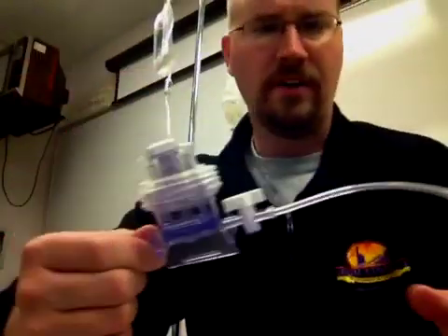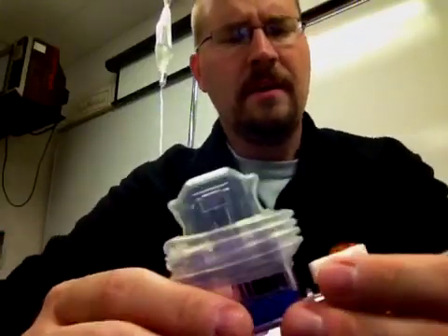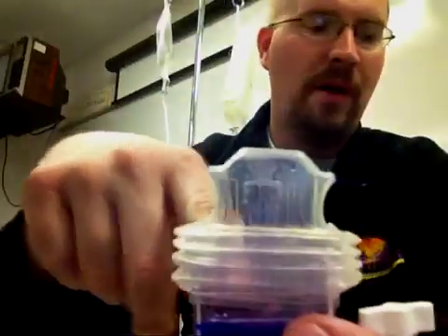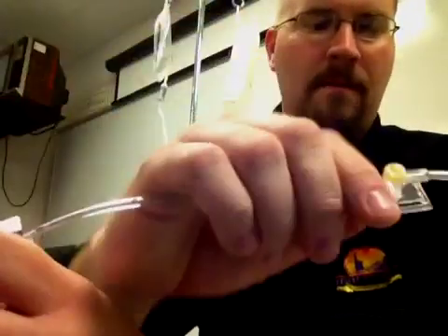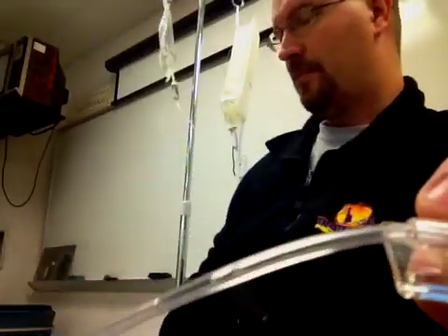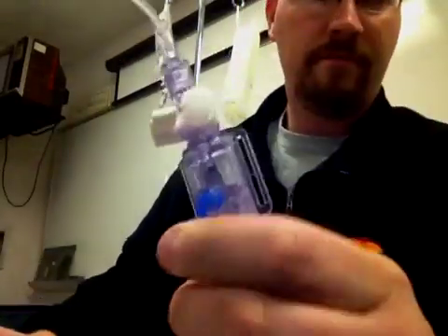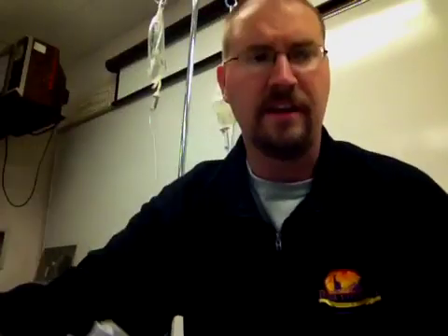Now, another thing that you'll probably run into is a little connector like this. This is actually called a vamp. What this allows you to do is, I can pull back on this like so, and when I pull back, I can pull back blood from the patient and pull blood back through this. What that allows me to do is it actually allows me to take a blood sample through this port. I get my blood, and then I push this back in until it clicks. I get a click. And then I go ahead and, through that little pigtail that I showed you earlier, flush the rest of the blood through. That's actually a really common way that we can draw blood, say from an art line, by the agency of this little thing called a vamp here. And there are other devices that are similar to the vamp.